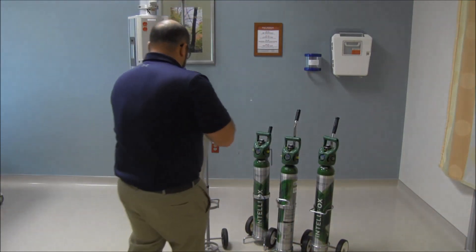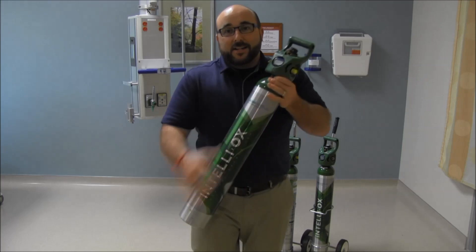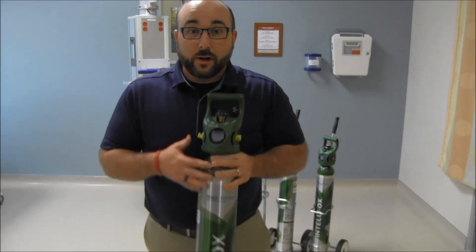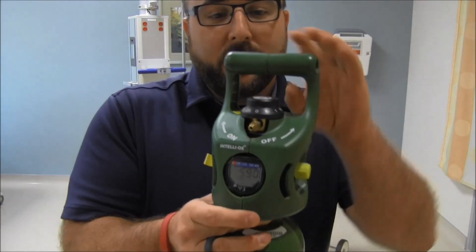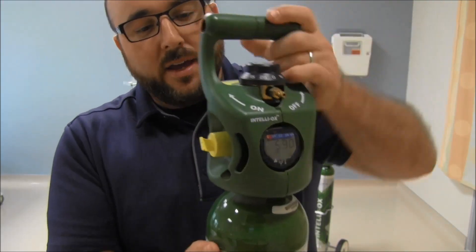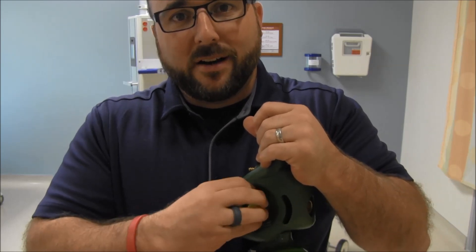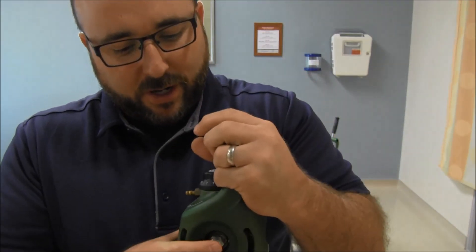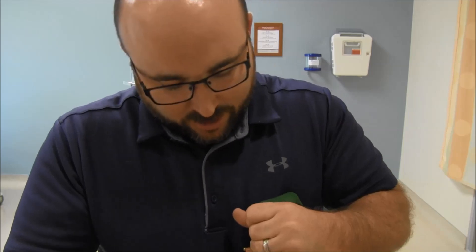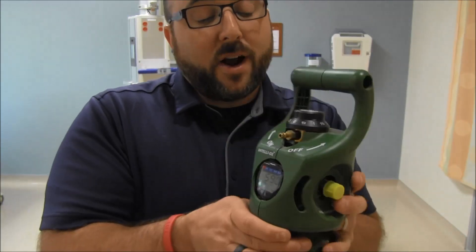Let's look at what we have as an option: the IntelliOx tank. This is also an e-cylinder, holds 2200 PSI — we'll call it 2000. It's got a different top with a large handle. We still have a nice connection here — the DISS connection for a portable ventilator — and you can run your portable vent through it, run oxygen to your BiPAP, and we also have the nipple for standard oxygen liter flow.